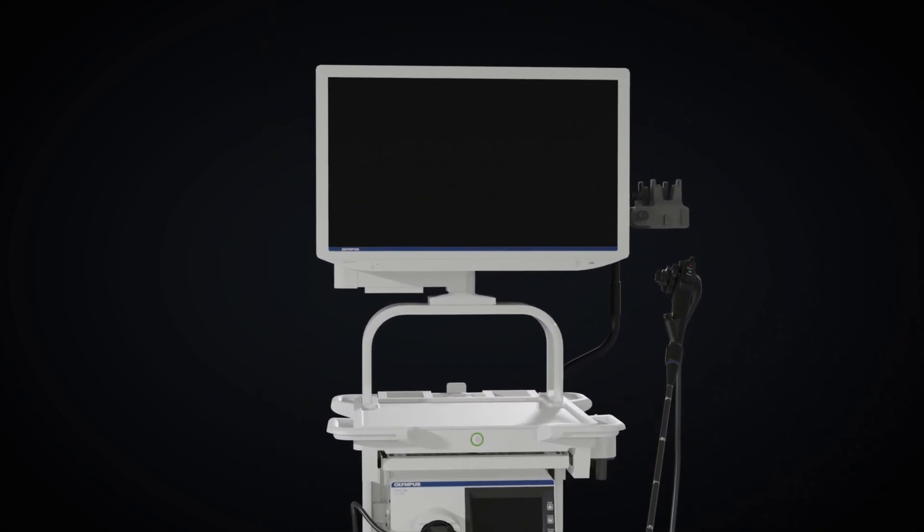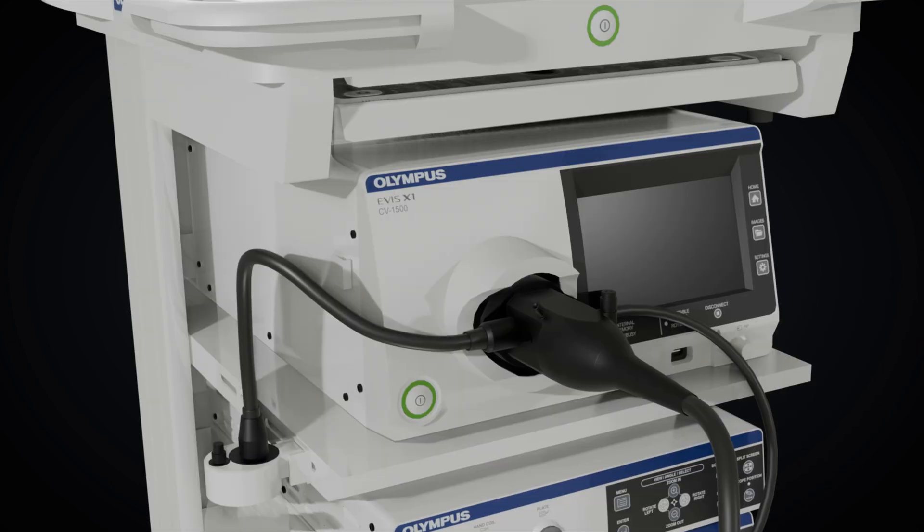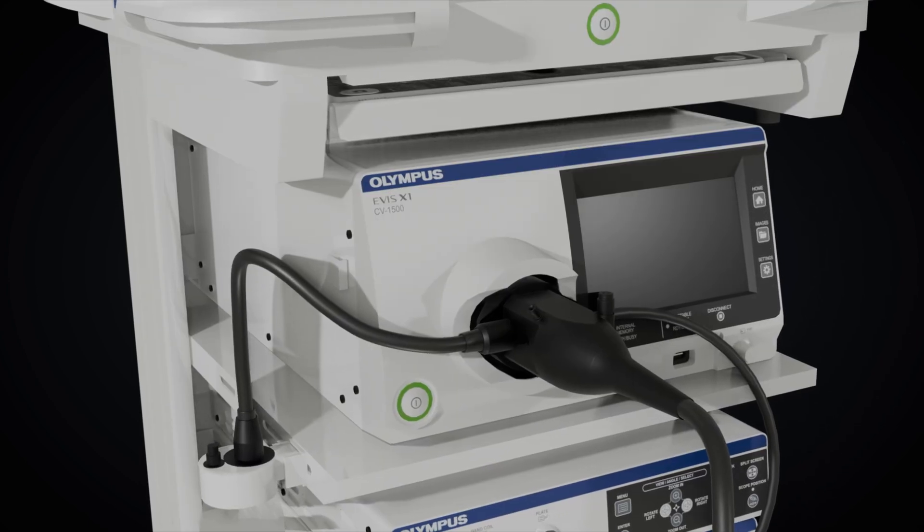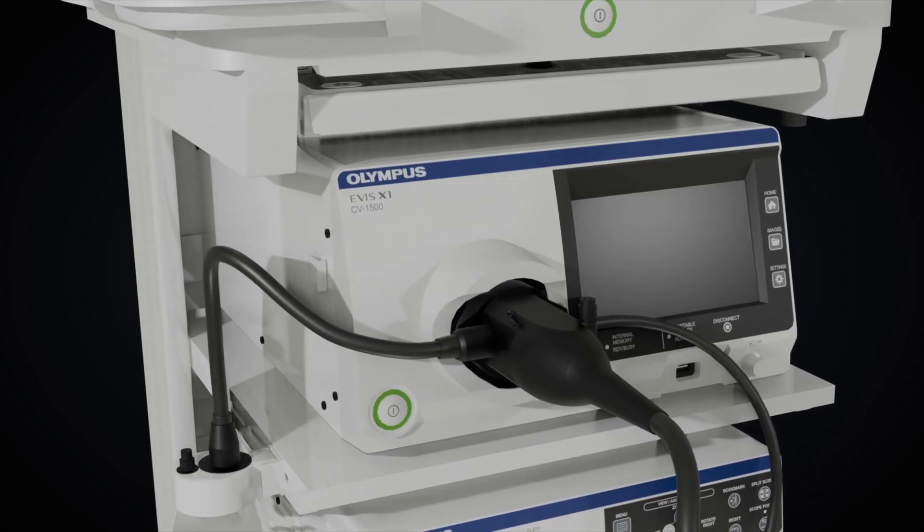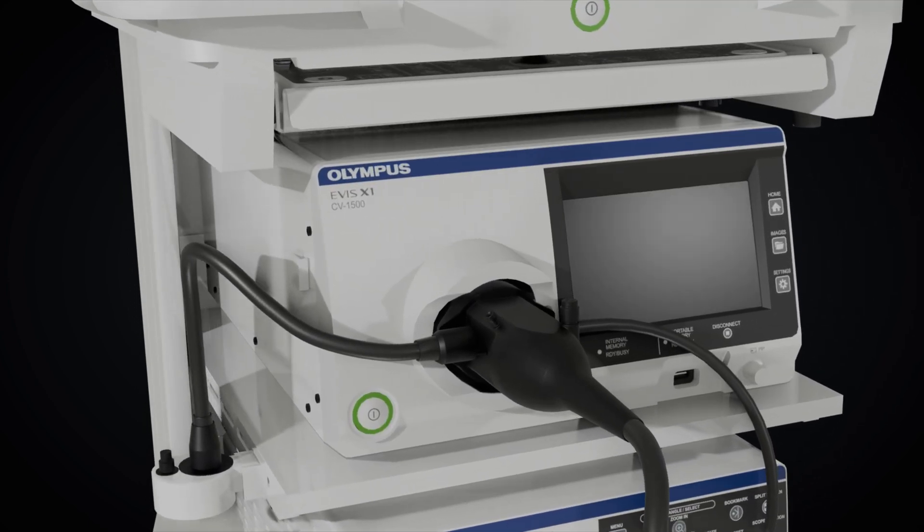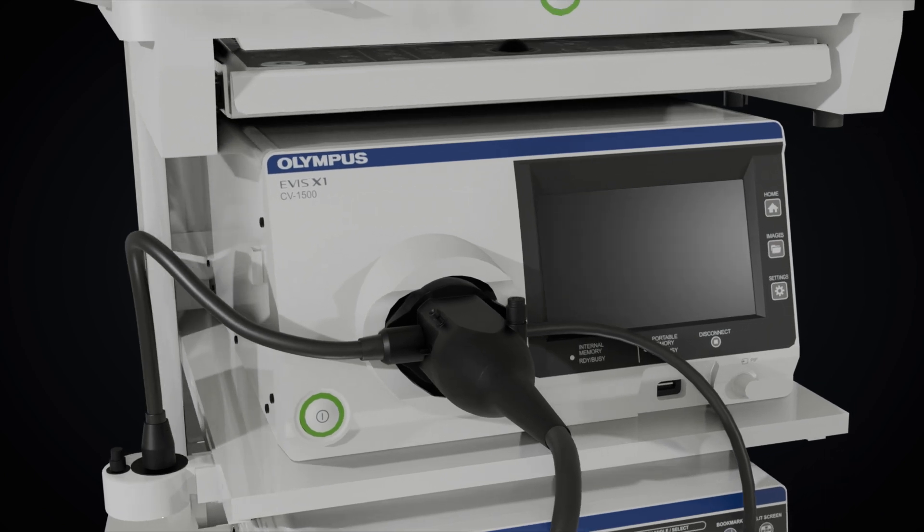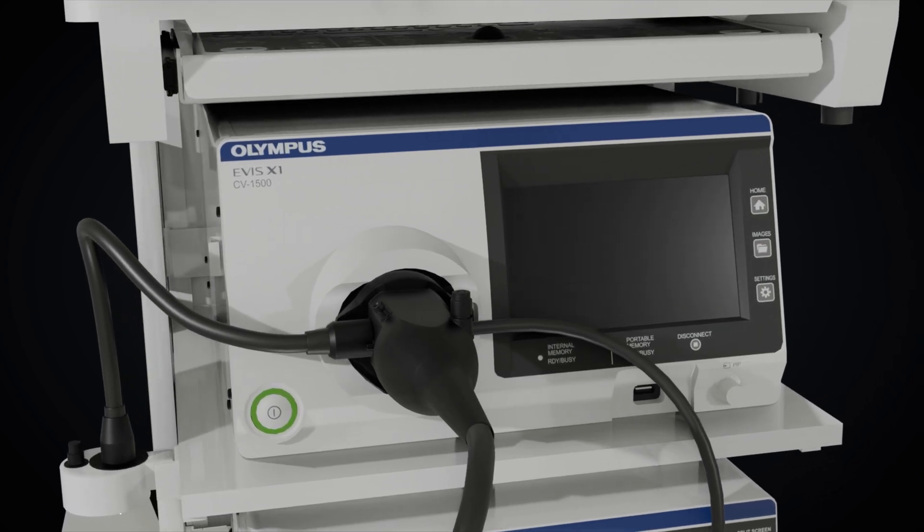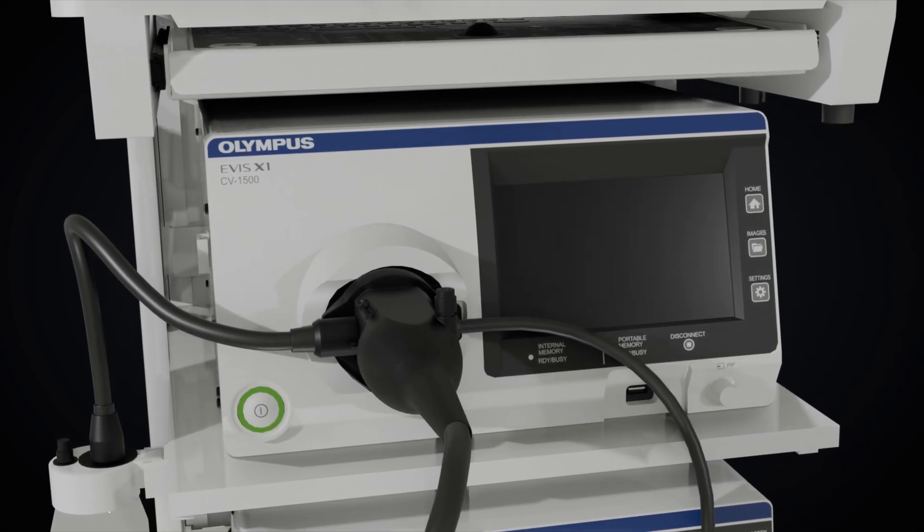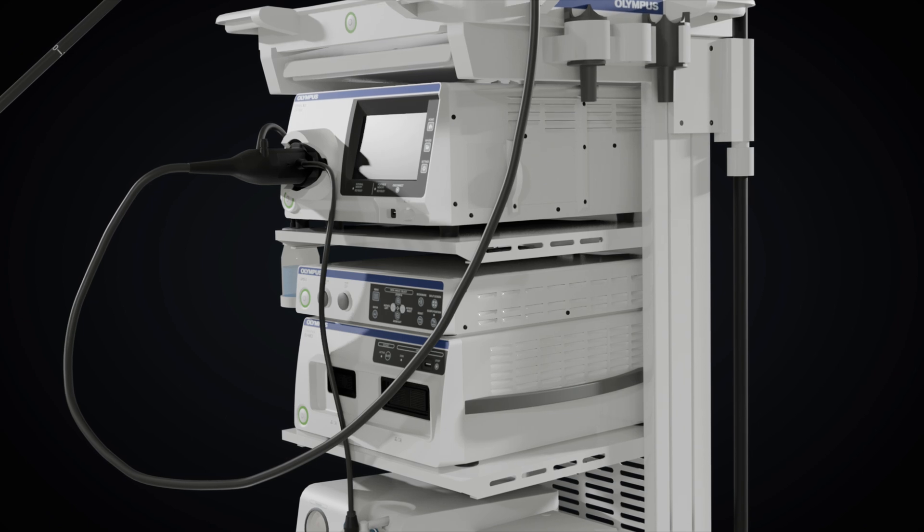In addition to high-definition vision, modern systems support various types of image processing. Imaging Management Hub simplifies the process of recording, managing, and editing high-resolution endoscopic images.